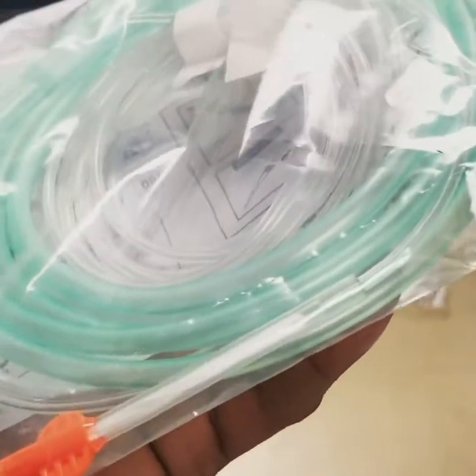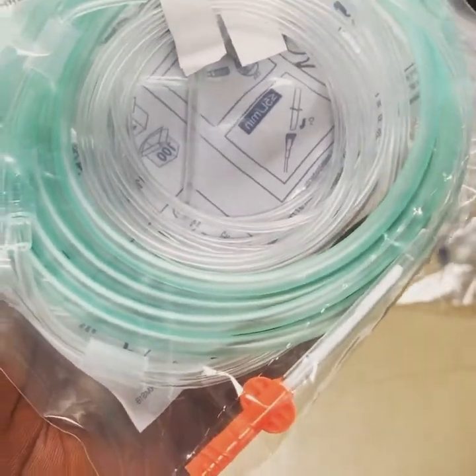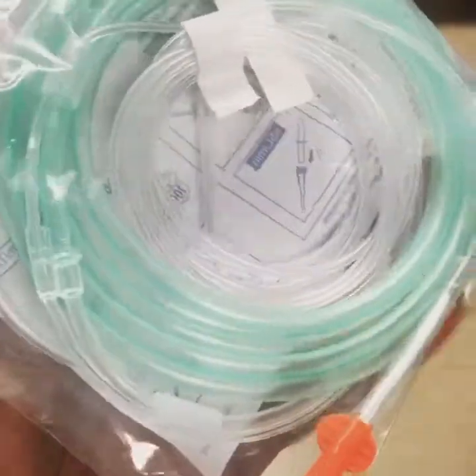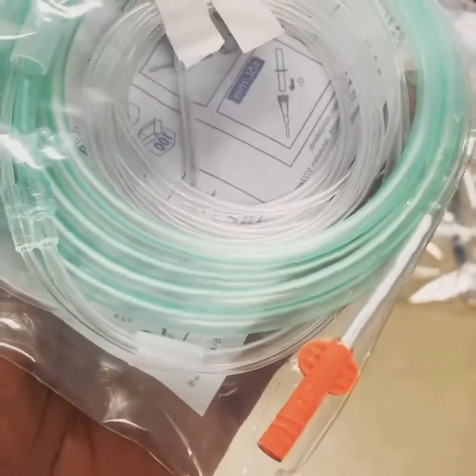It's pretty accurate usually. We also usually get a blood gas to make sure it's correlated right. But when we have a patient come into the emergency department in an emergency, we just put them on this nasal cannula interface right then and there and we can get our reading.